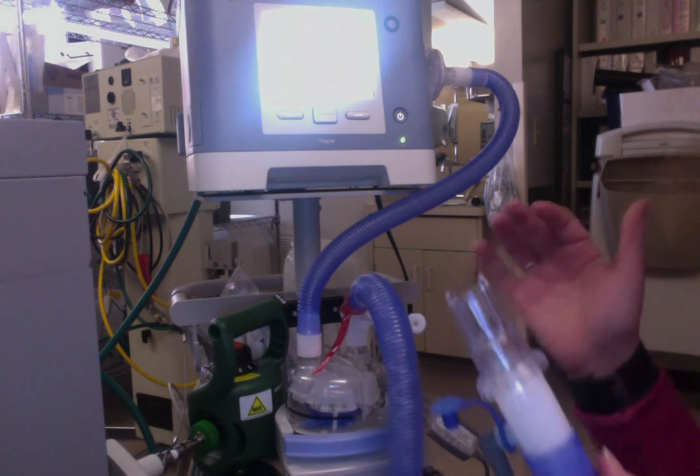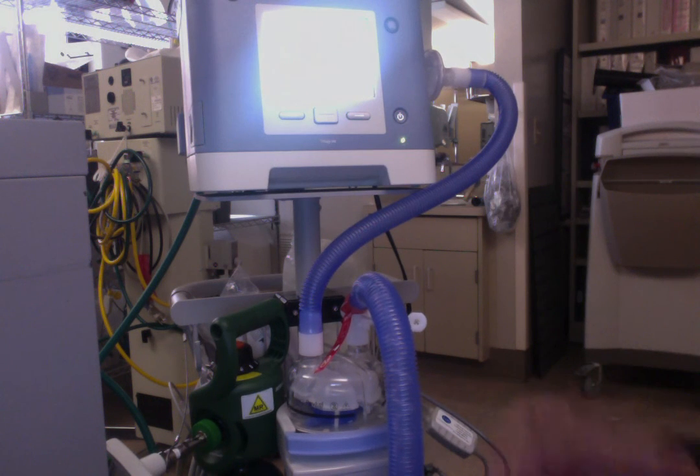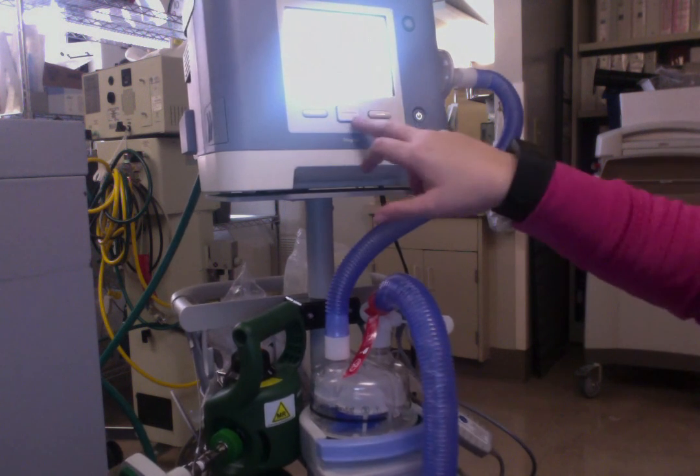I can kind of cover my circuit and it will give pressures and rates and all of that. So that's it.